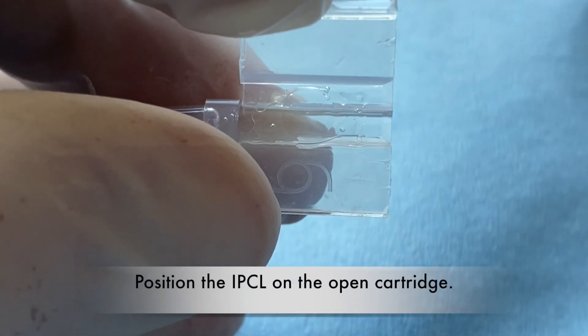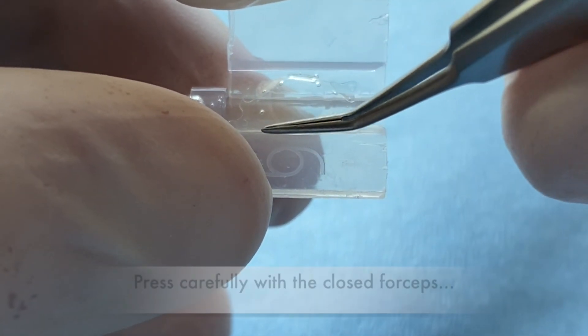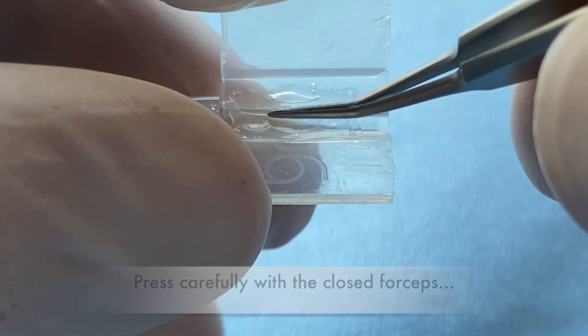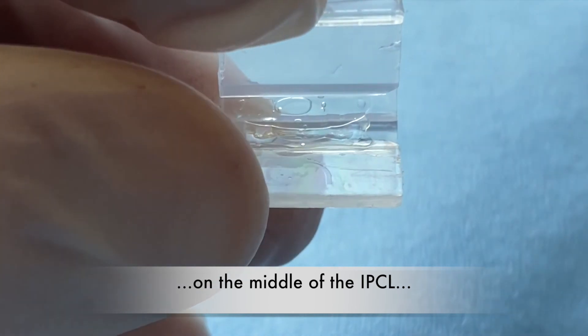Position the IPCL on the open cartridge. Press carefully with the closed forceps on the middle of the IPCL.